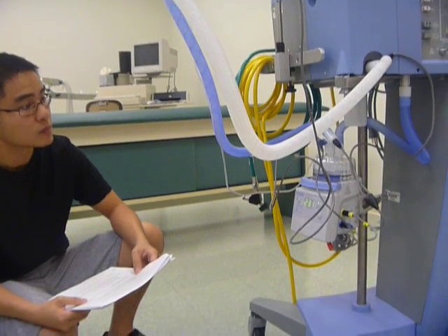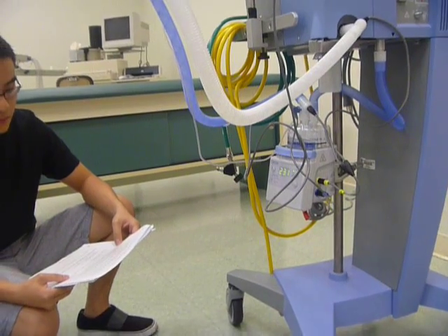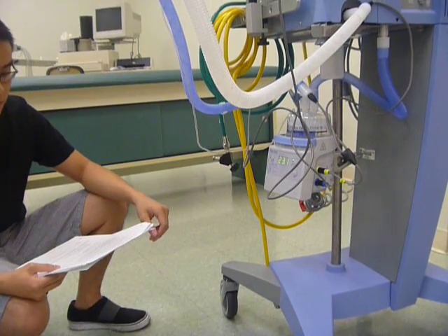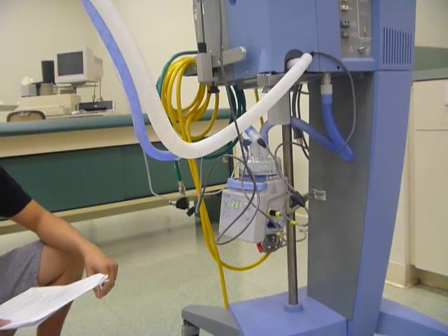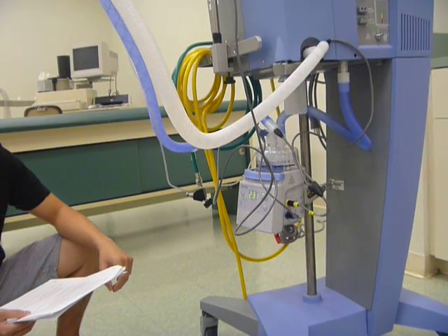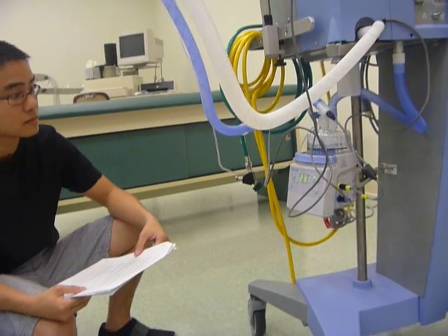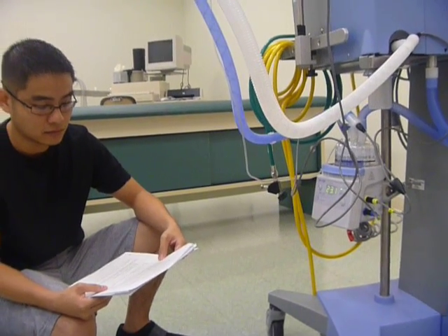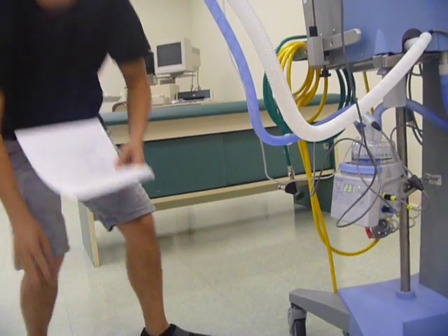So you selected invasive mode. Why would you select non-invasive mode? If they were wearing a mask? Yes. So you can do BiPAP through the ventilators now — that's just a mask, that's not an endotracheal tube. Invasive is for endotube or tracheostomy. Non-invasive is for a mask. Very good.